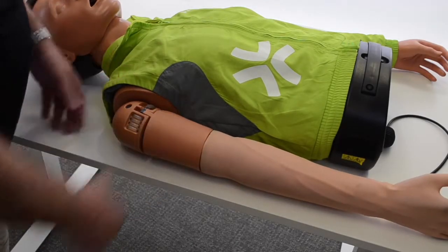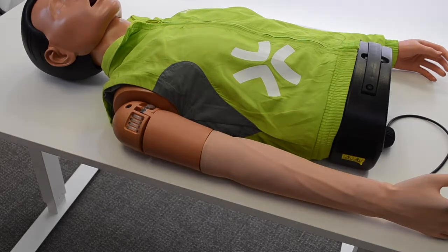In this video we're going to talk about the IV arm. In order to work with the IV arm and prep it to be filled, the easiest thing to do is to remove the arm from the mannequin.